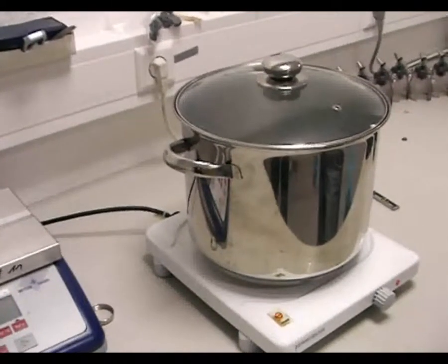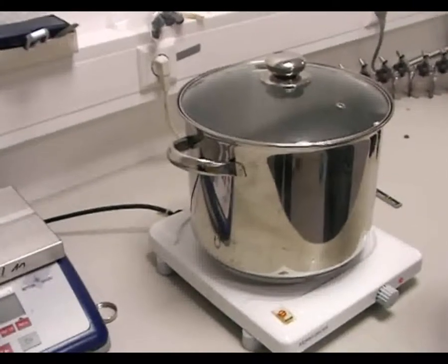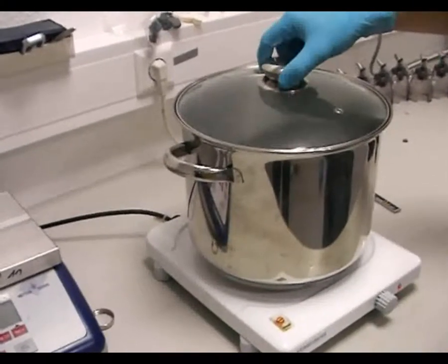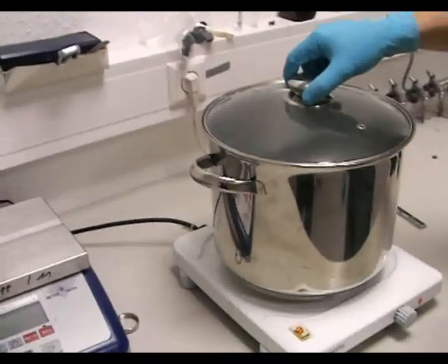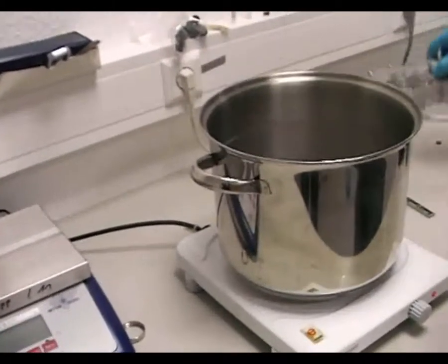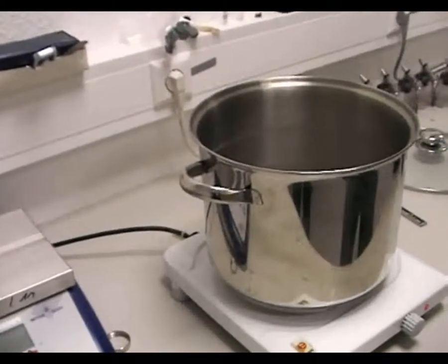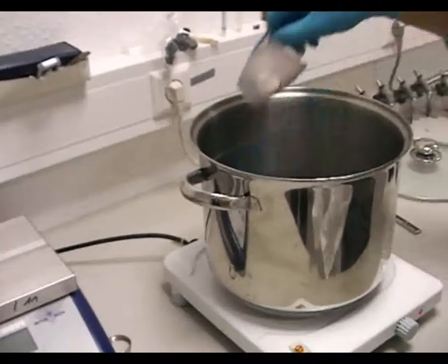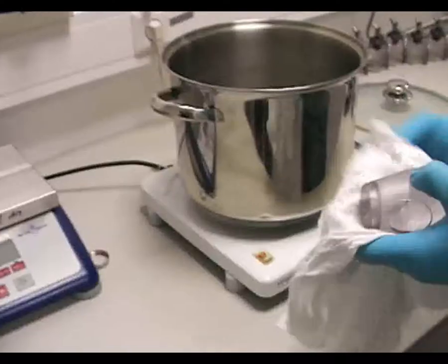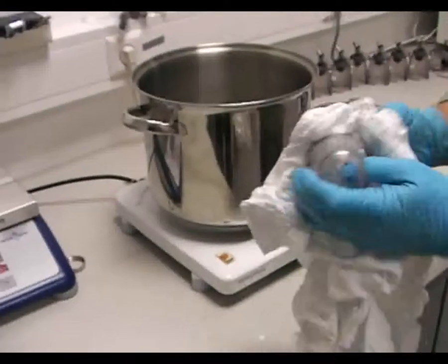Die Teile können abgetrocknet werden mit einem Tuch und wieder zusammengebaut werden. Teile aus dem natürlich jetzt erkalteten Kochwasser entnehmen und abtrocknen.